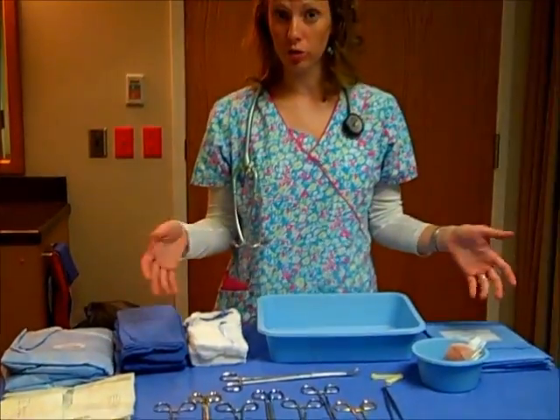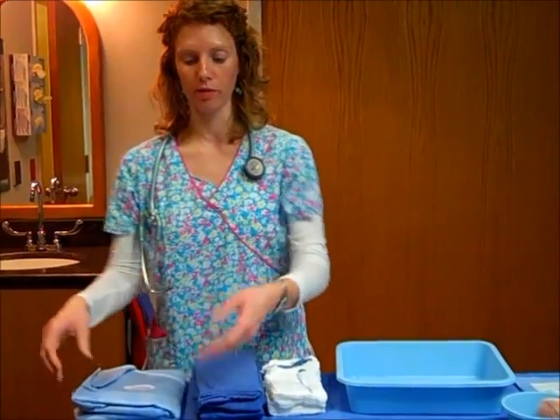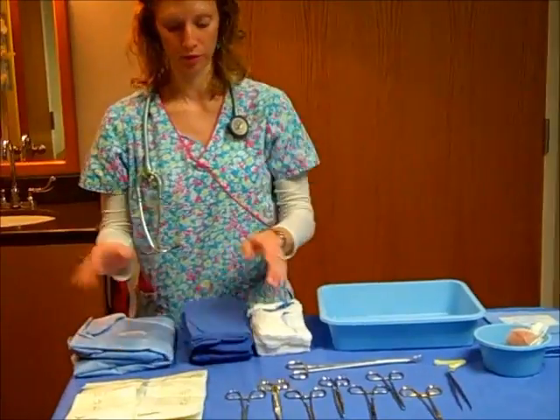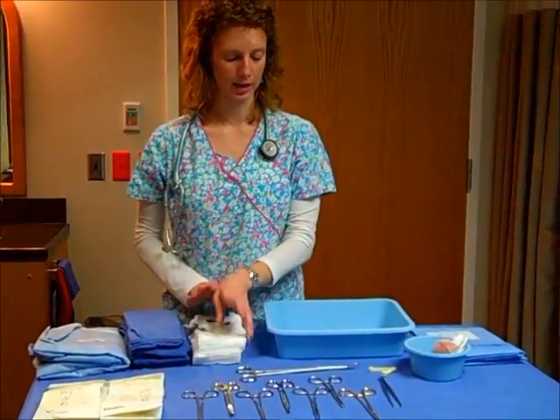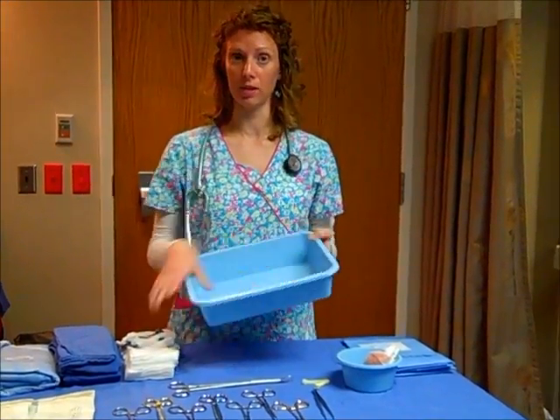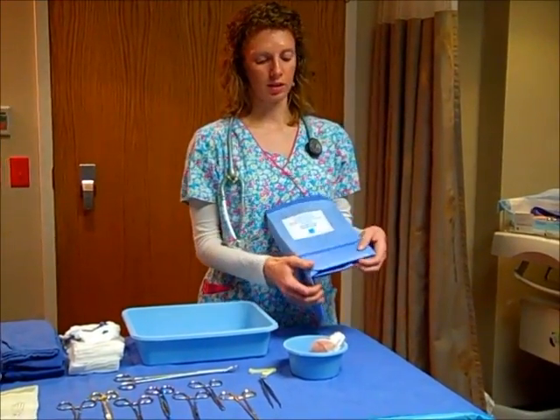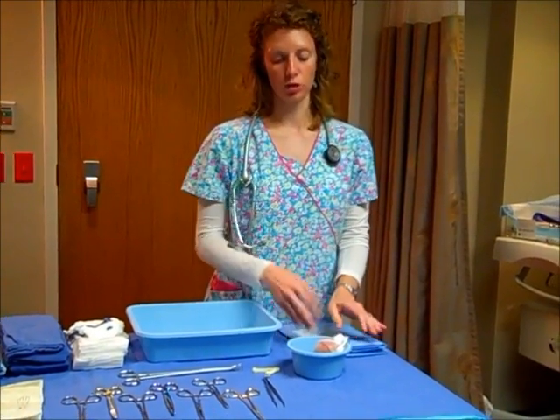But on a general delivery table, you may see a sterile gown for the physician or the midwife. You'll see sterile gloves that we've talked about multiple times. They'll have a fresh pair for the delivery. You'll see a variety of different rags for bleeding and cleaning. This is called a placenta basin. So after the baby's delivered, then we wait for the placenta. And the placenta would go in here because we always assess that. And this is an under buttocks chucks pad just to kind of prevent the mess that ensues with labor.